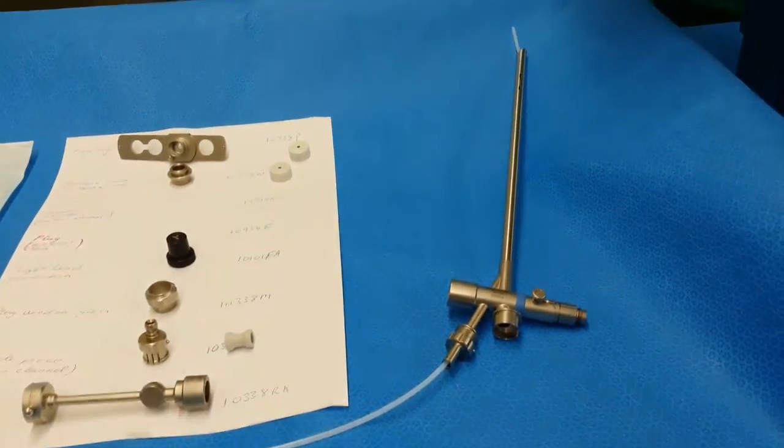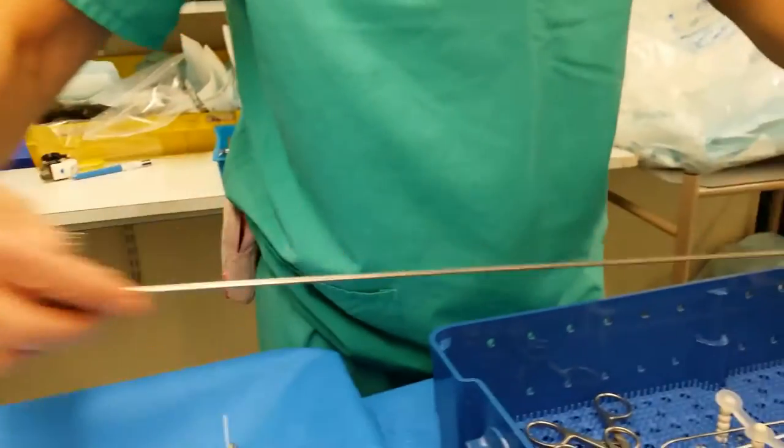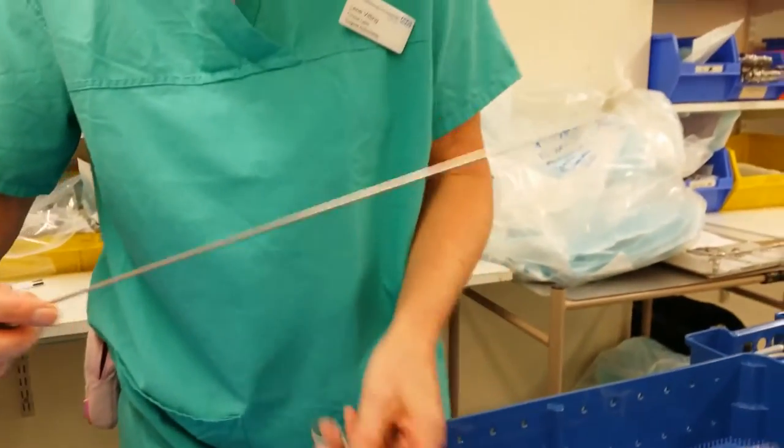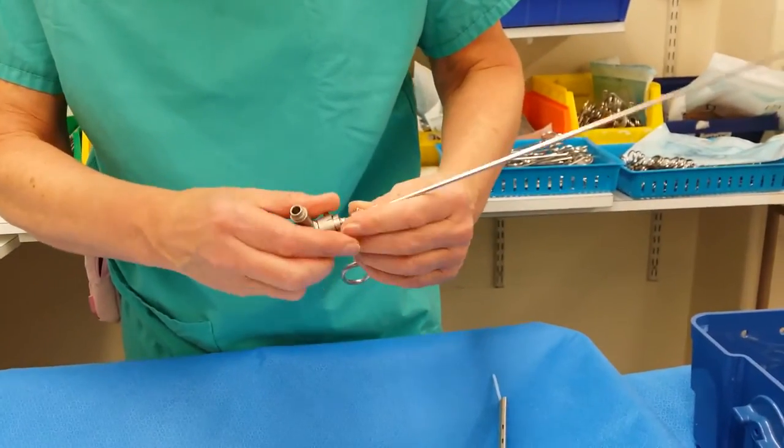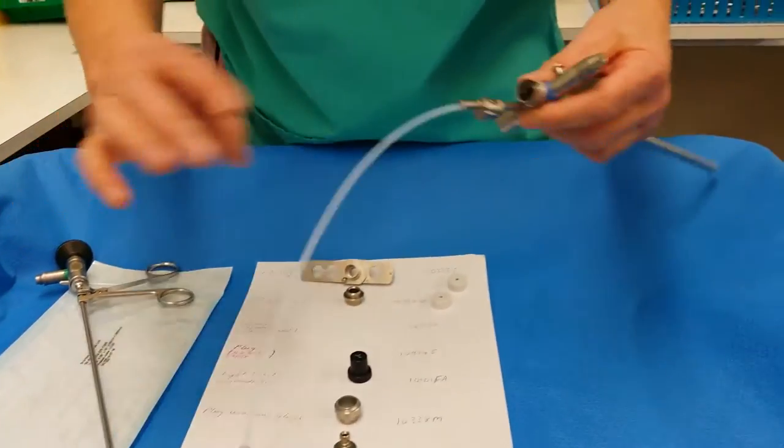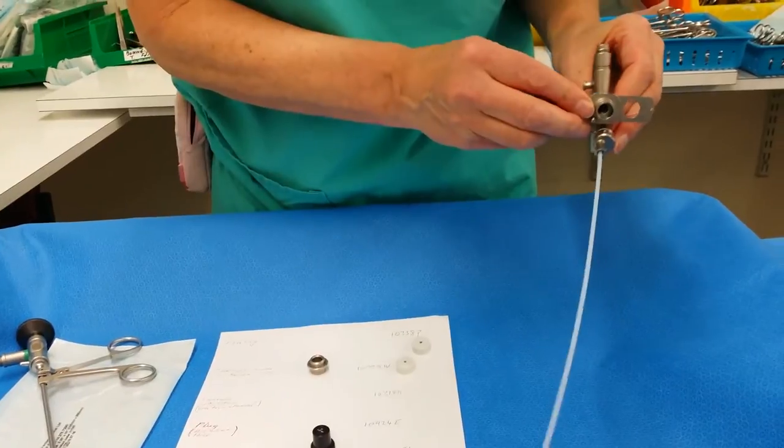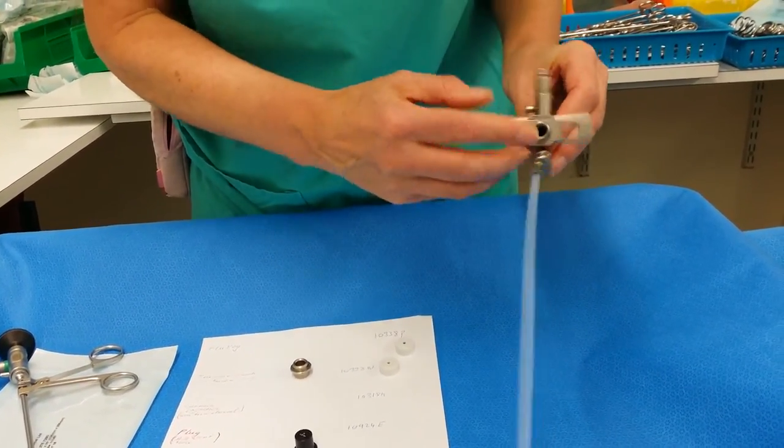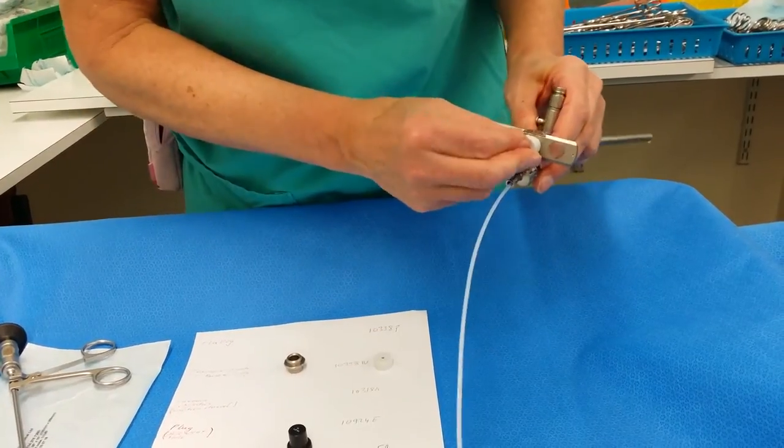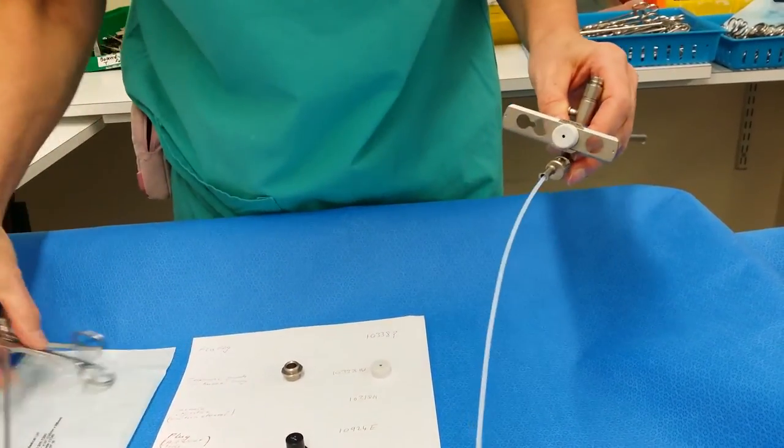You can use it directly or through the biopsy forceps. They will use this most commonly, and you can put your biopsy forceps through.